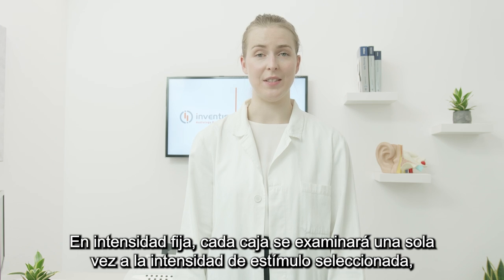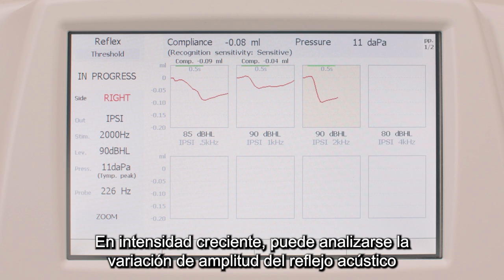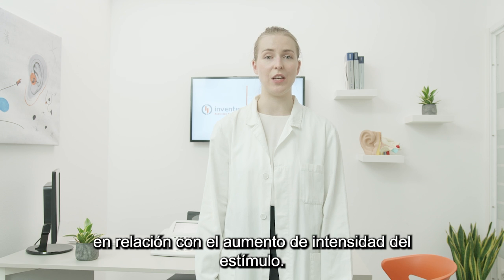Under fixed intensity, each box will be tested just once at the selected stimulus intensity, while in threshold mode, each box will be tested until acoustic reflex is detected. In growing intensity, the variation in amplitude of the acoustic reflexes can be analysed in relation to the increase in intensity of the stimulus.